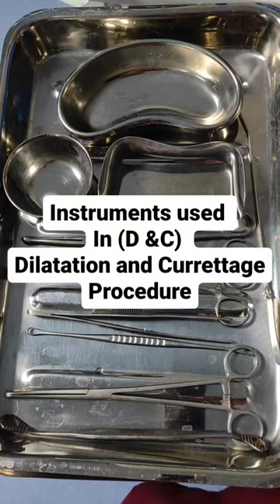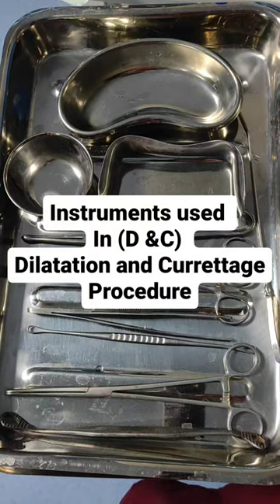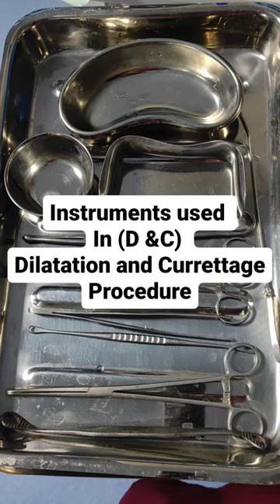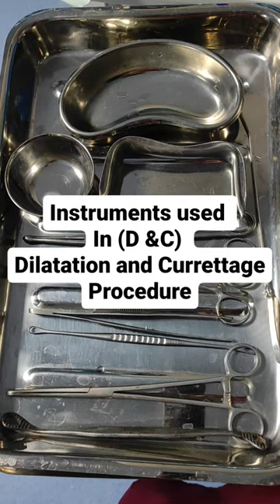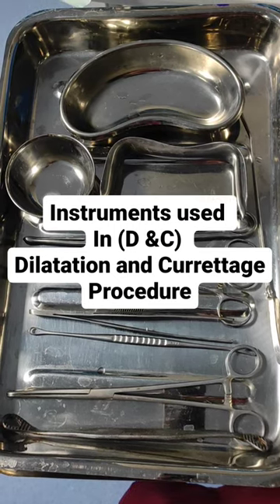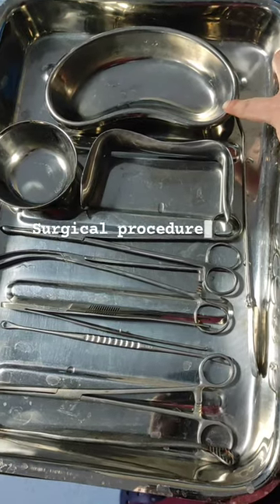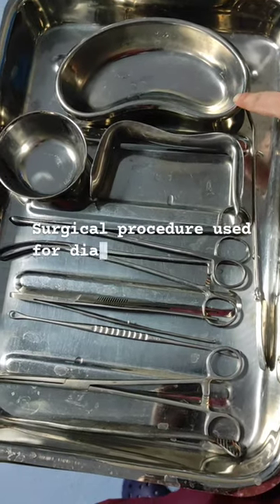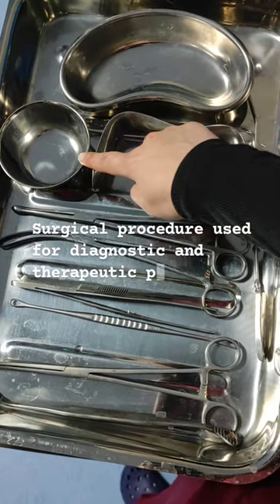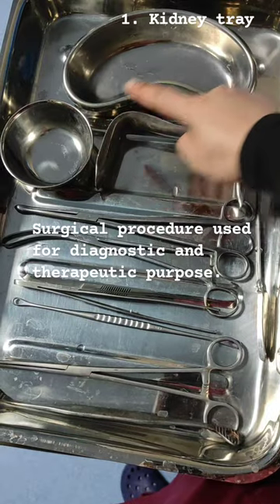Today I am going to tell you about articles you need for DNC. DNC means dilatation and curettage. It is a surgical procedure used for diagnostic and therapeutic purposes. The first article we need is a kidney tray, to collect the waste and soiled gauze pieces.